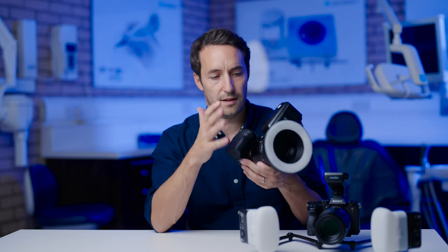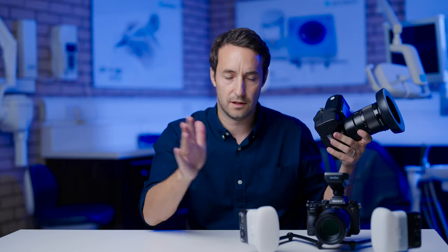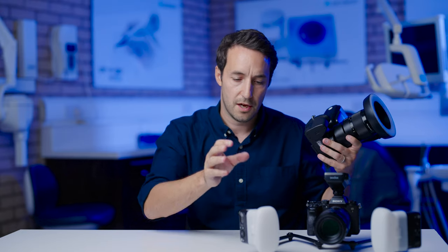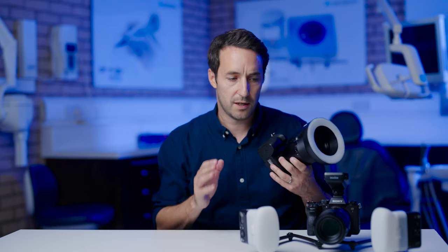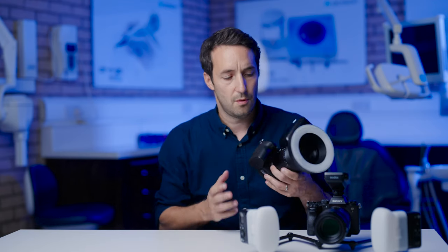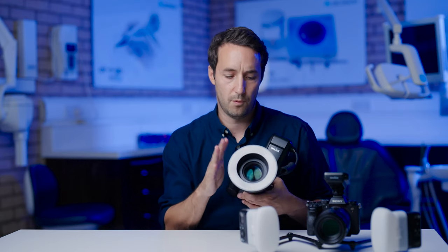The ring flash also creates standardization. When using a bracket, maneuvering the flash between a pre-op and a post-op picture can change the resulting image. What we want is standardization — the ability to take a picture every time from the same angle with the same lighting setup — and this is best achieved with the ring flash.